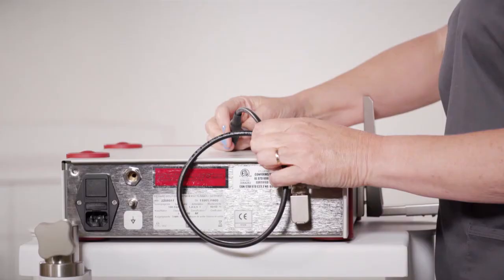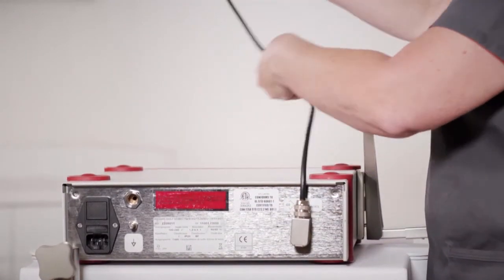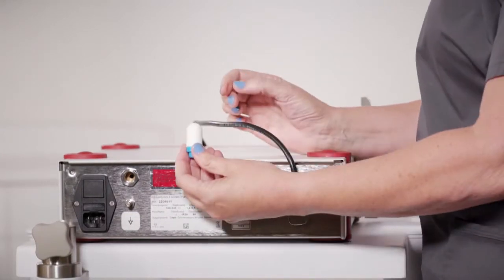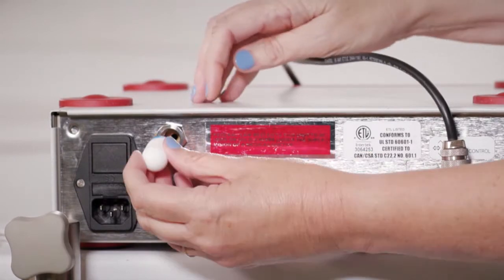You then want to lay the connection cable from the back of the suction pump unit across the top to the front of the unit. Connect the silencer into the suction pump unit by screwing into the threaded port clockwise.